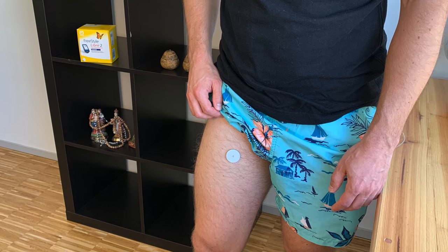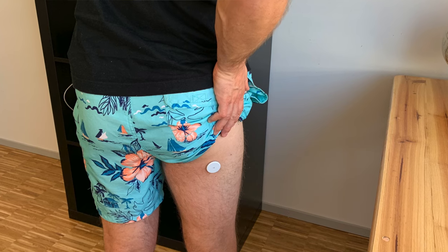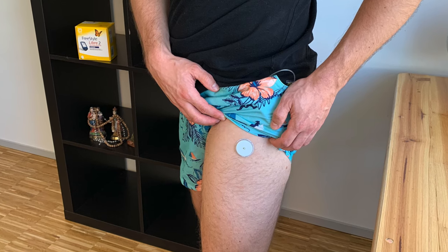There is such a high variability of spots on the thigh because they are simply much bigger than arms, so you can rotate the spots without constantly overusing and damaging a very small skin area like I do with the arms.